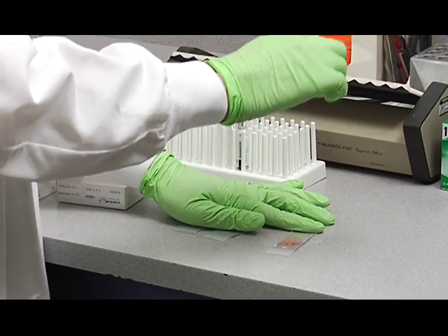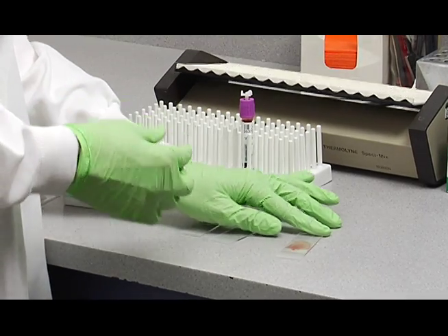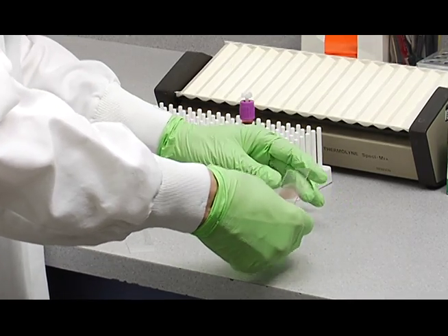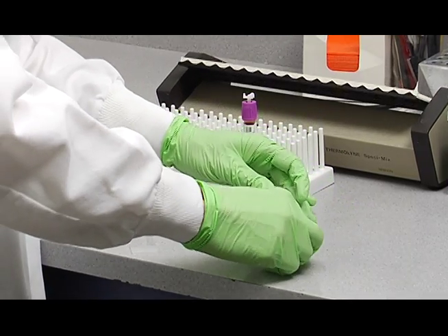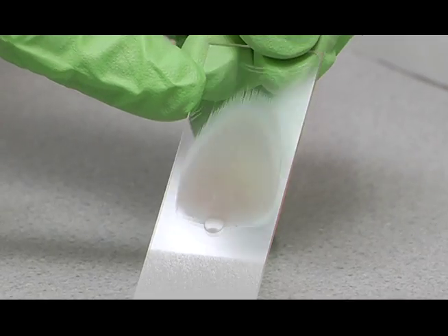And don't swoop up like this. That'll make streaks on the end of your smear. You can wave it dry. You should have a nice corona right there on the edge.